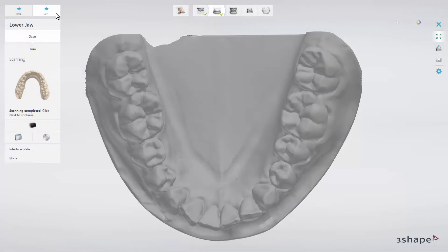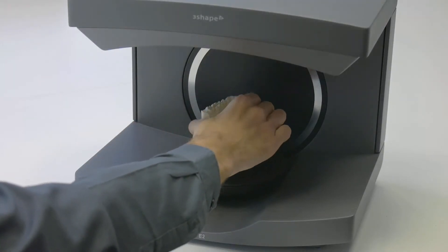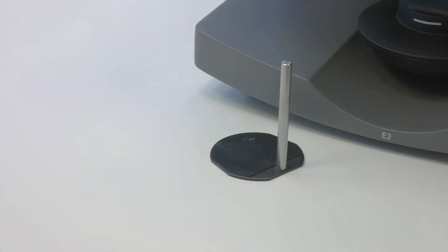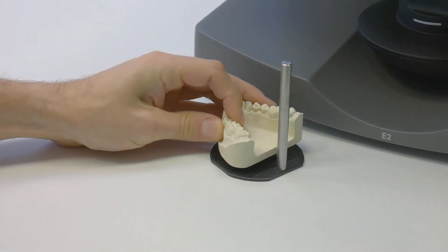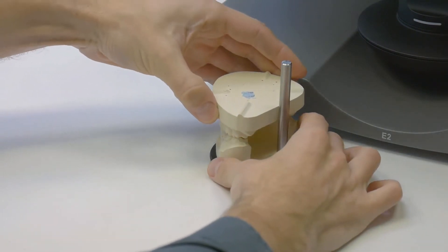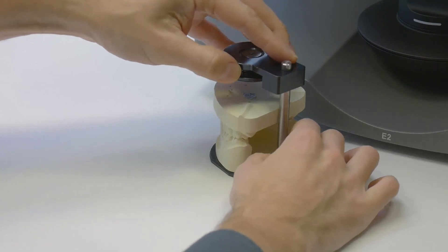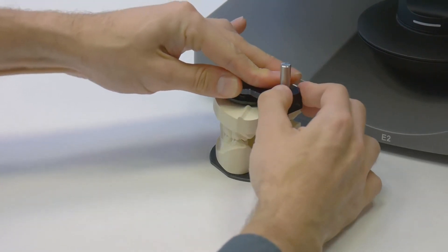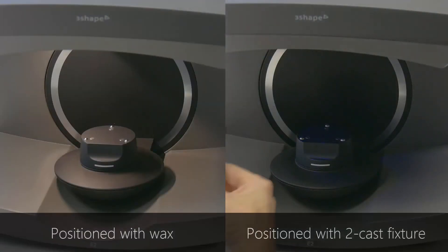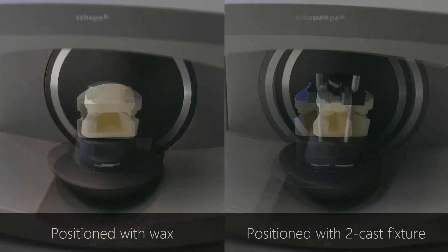After scanning the antagonist model, click Next and remove the antagonist model from the scanner. The software will ask you to insert the upper and lower arches to scan the bite. Position the models together using either the two-cast fixture tool, or you can securely place them together using wax. Insert it into the scanner and wait until the scanner starts scanning if the Auto Start option is enabled.